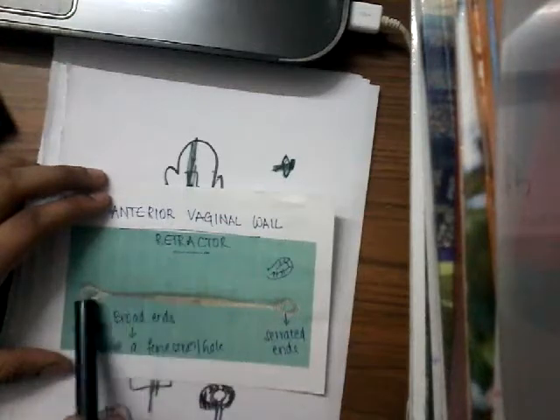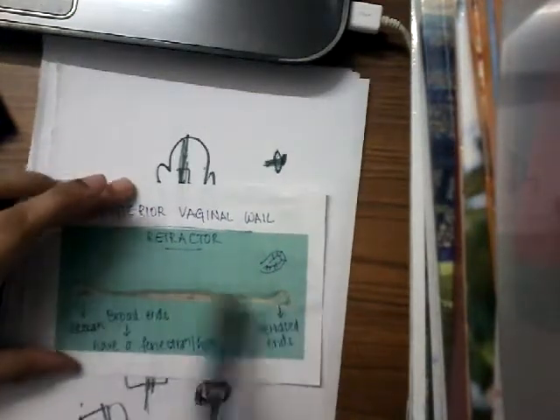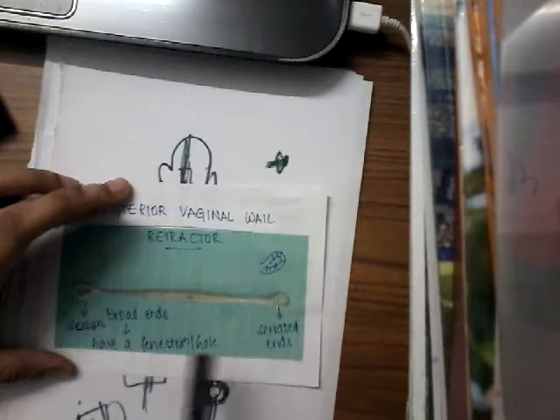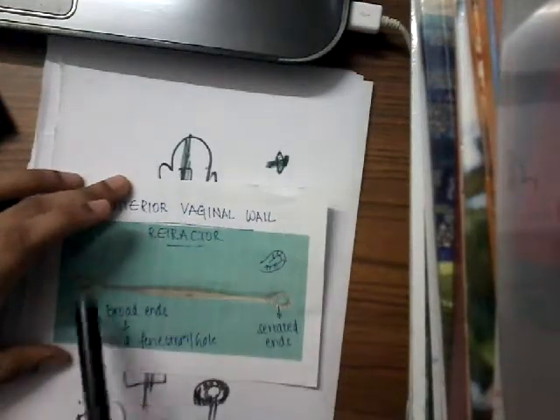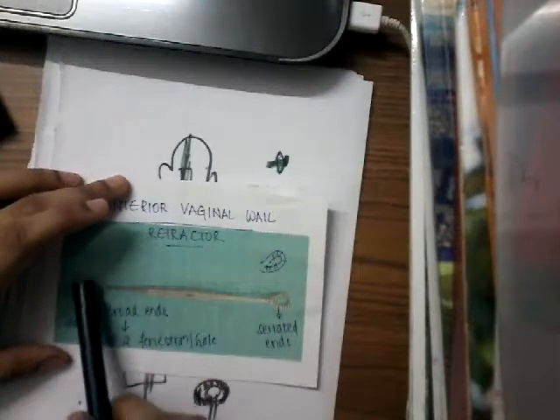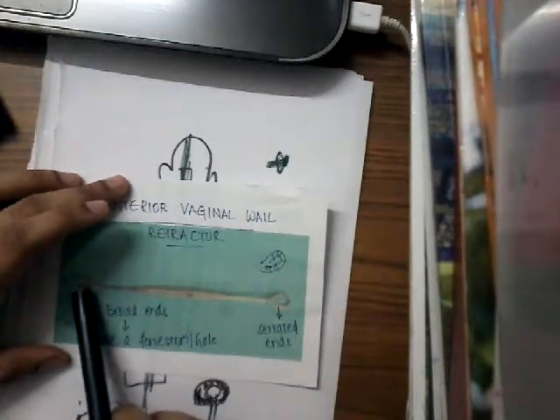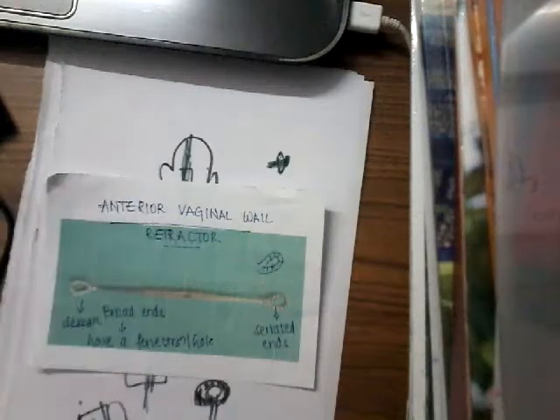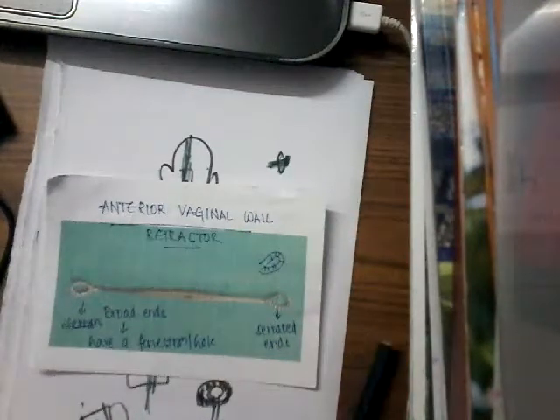To summarize: identification is by the presence of a long straight rod, broadened ends on either side, a fenestration or hole at the center of each broadened end, and serrations on those broadened ends. This is the way you identify the anterior vaginal wall retractor.